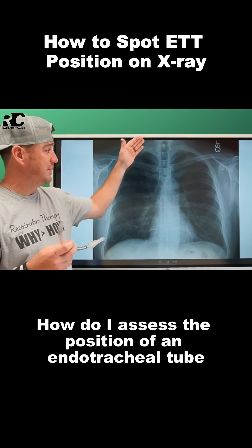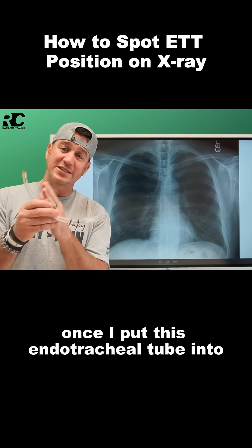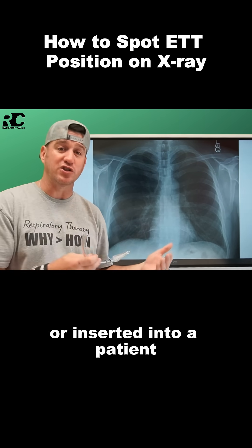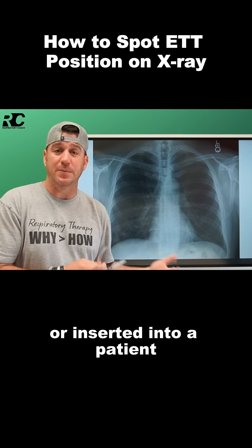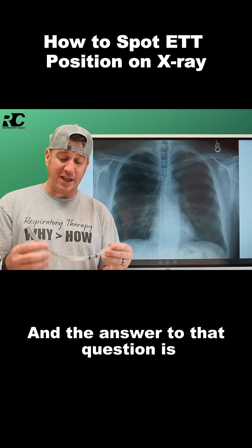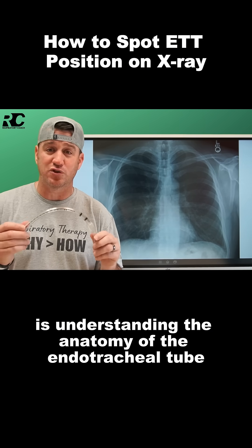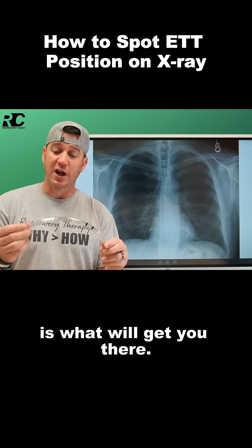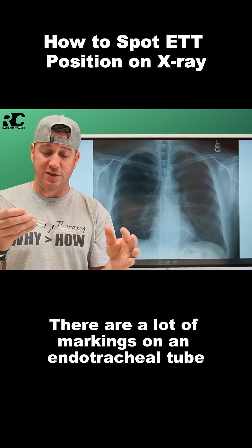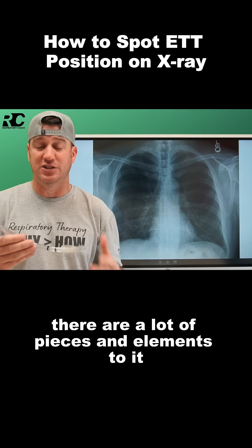How do I assess the position of an endotracheal tube once I insert it into a patient's trachea? The answer to that question is understanding the anatomy of the endotracheal tube. There are a lot of markings on an endotracheal tube, and a lot of pieces and elements to it.